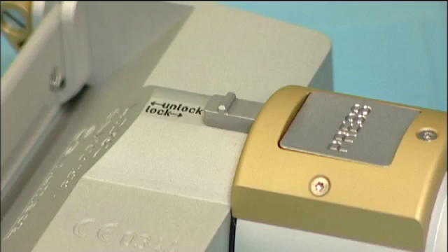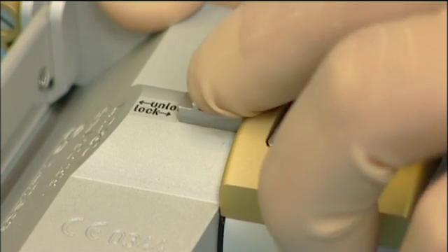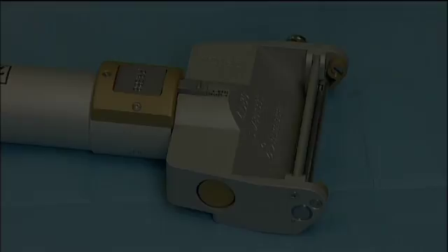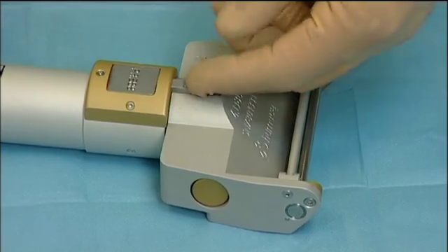For safety reasons, the dermatome is provided with a locking mechanism that prevents accidental run. To insert a blade in the dermatome, the two locking buttons of the head are pressed and the blade cover is opened.